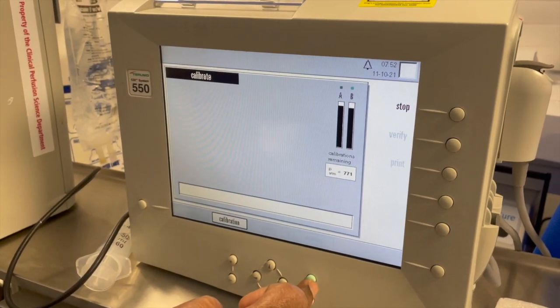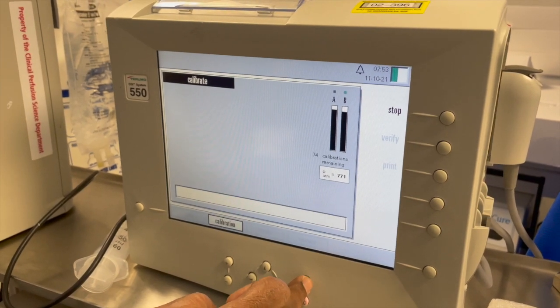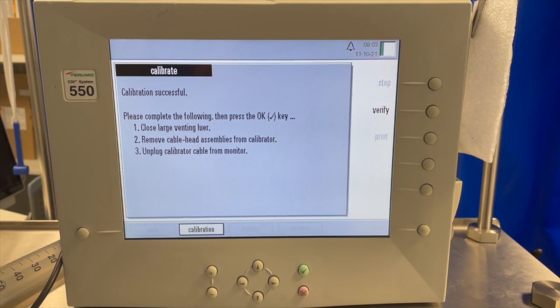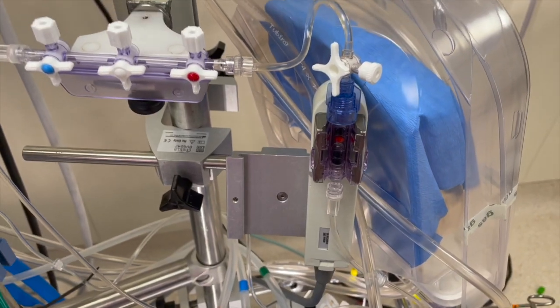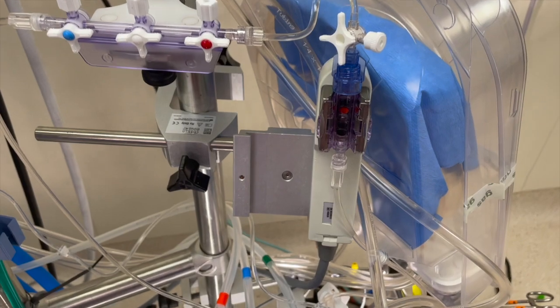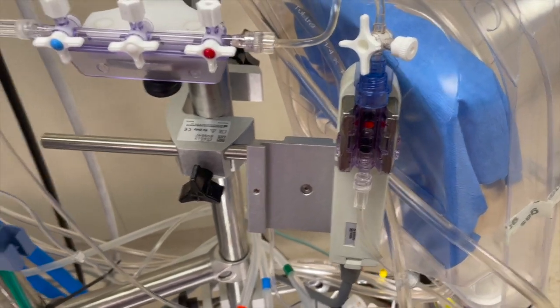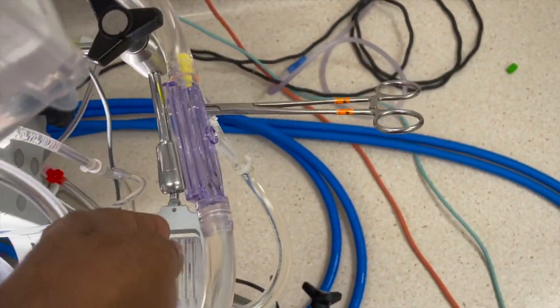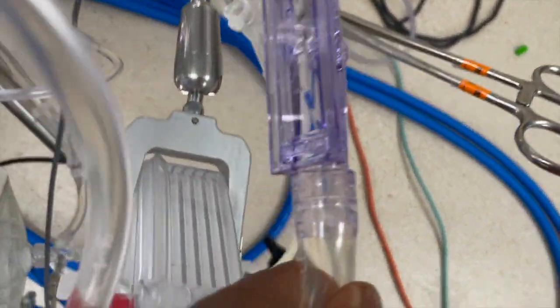When the calibration successfully ends, disconnect the calibrator from the monitor and tighten the large blue top cap. Remove the white filter and place the sensor into the circuit. Then connect the venous saturation probe onto the venous cuvette.